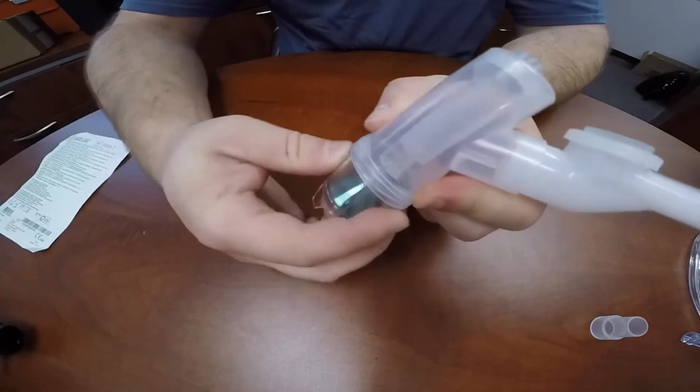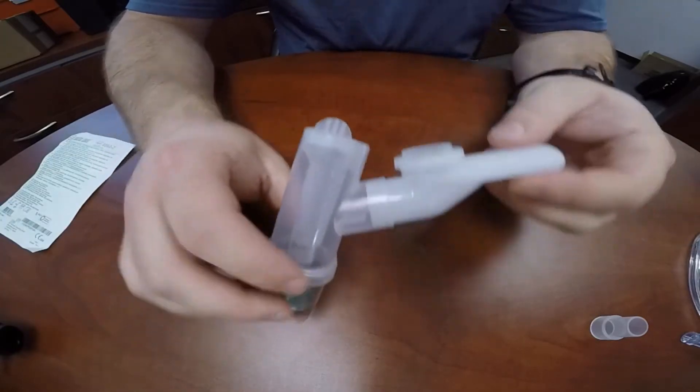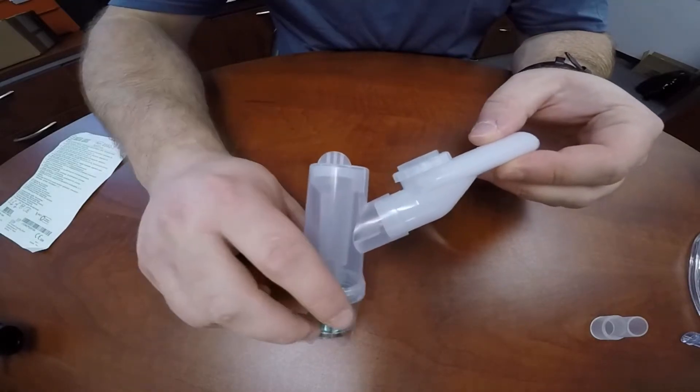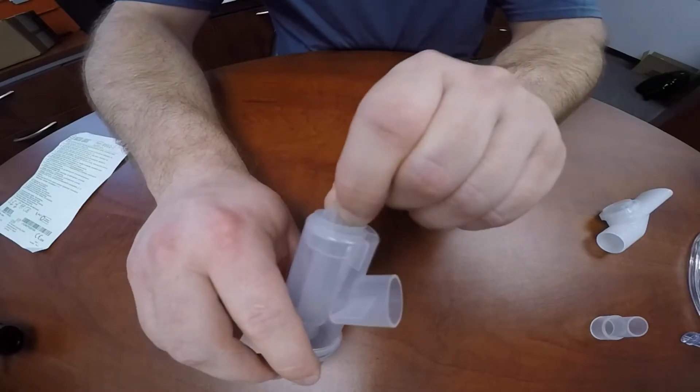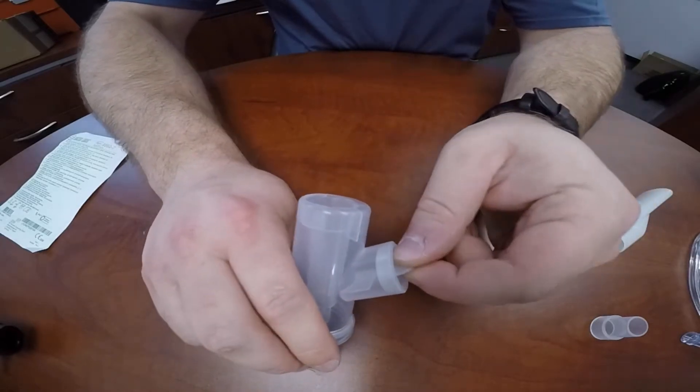The standard assembly for handheld use: you'll have the inhalation chamber plugged into the top and you'll attach the mouthpiece to the mouthpiece port.